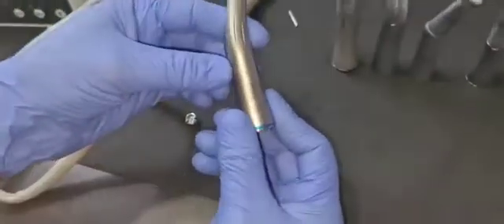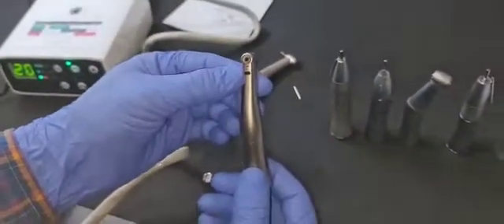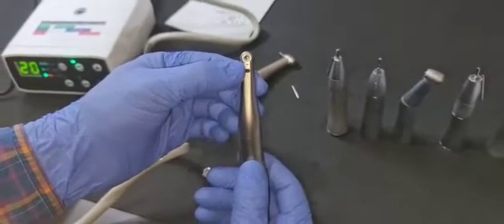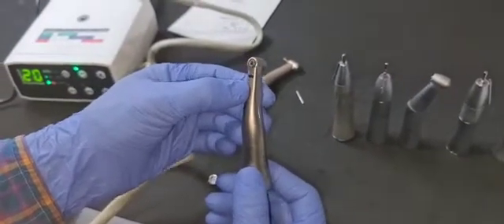This is the 1 is to 1 contra-angle handpiece where you can use latch-type contra-angle burs. This is also a fiber optic handpiece.